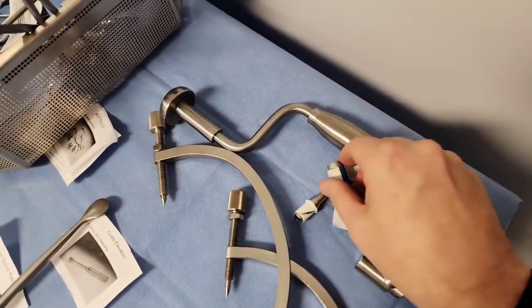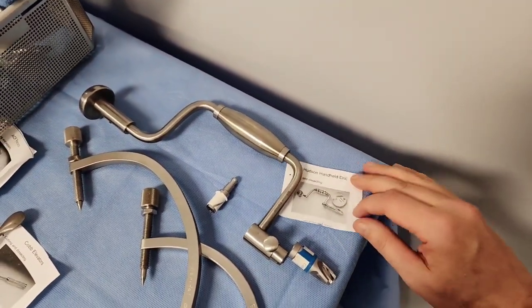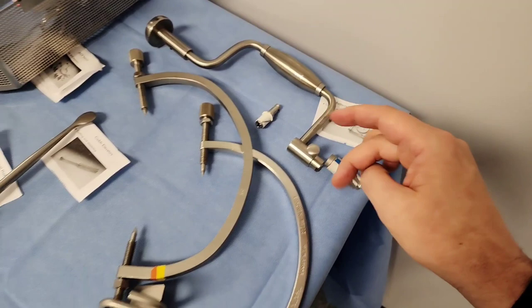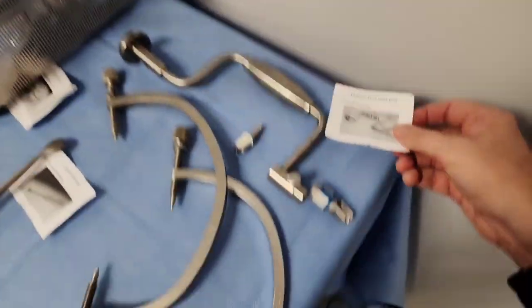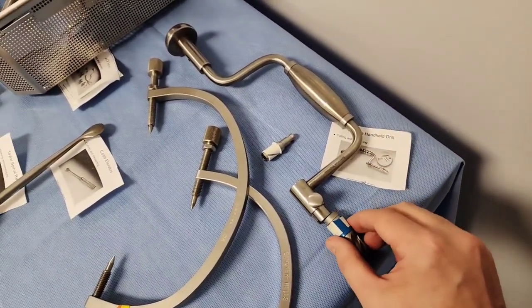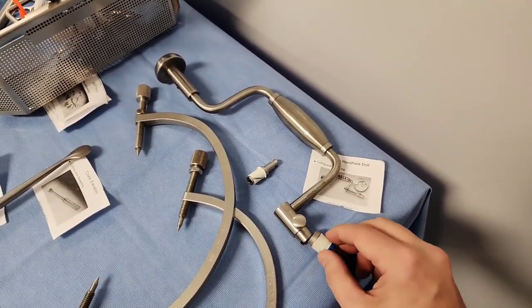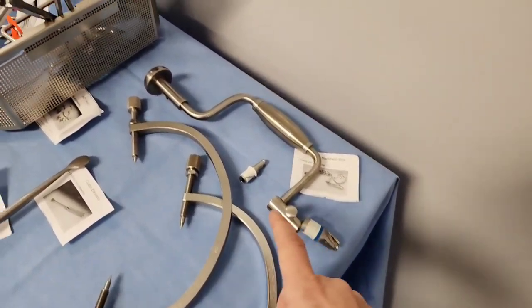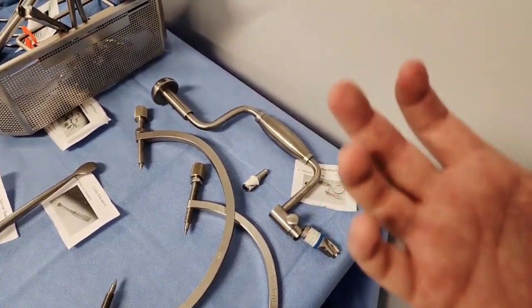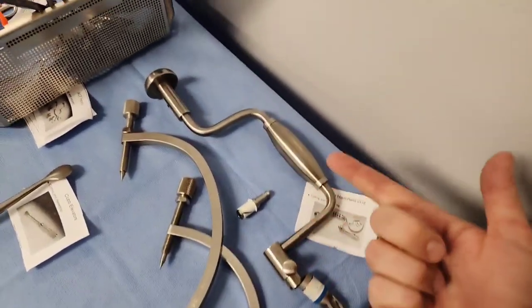This funny-looking thing is a Hudson brace — a Hudson handheld drill. What do we use this drill for? Epidural hematomas, or any hematoma within the brain — we do something called burr holes. It's kind of a primitive thing; there are more pneumatic drills that probably substitute it. But for CST purposes, this handheld drill will drill burr holes, which is essentially a hole within the cranium to relieve pressure within the brain — the intracranial pressure. It's called the Hudson handheld drill.